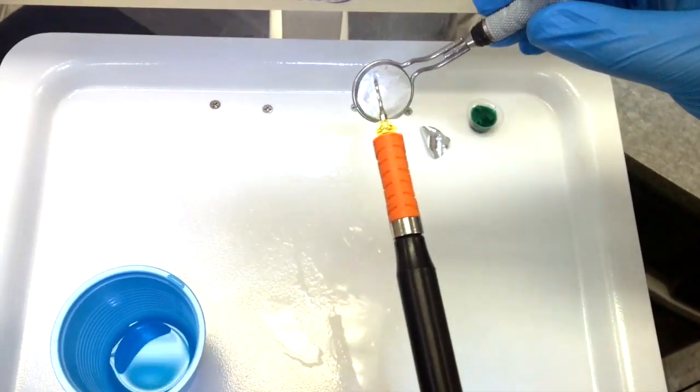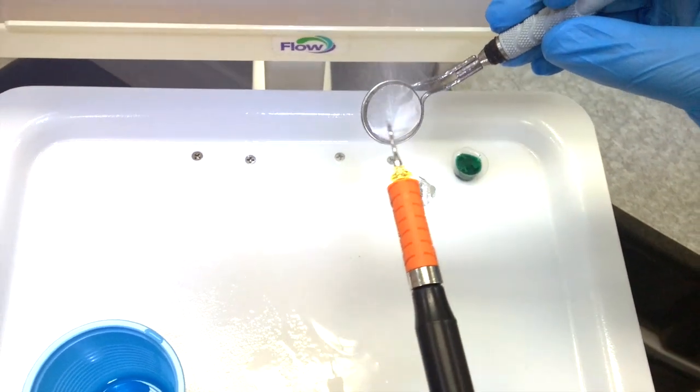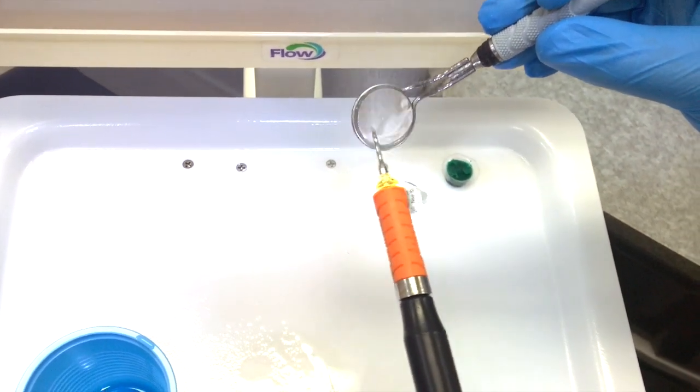And if you see, when you use the ultrasonic, it just rinses right off. And this actually lasts quite a while.